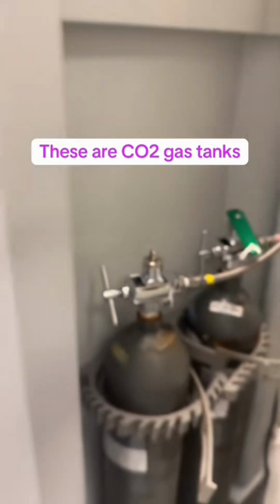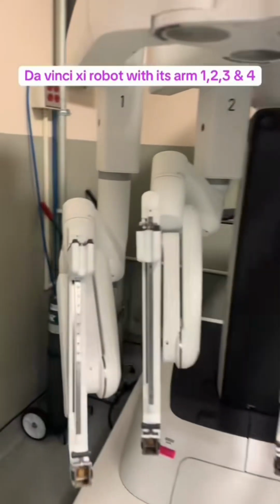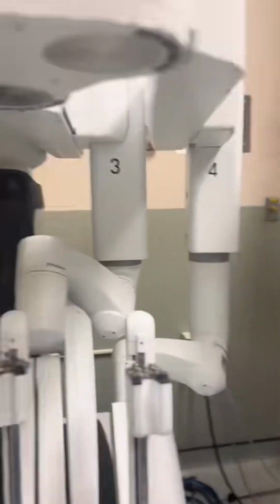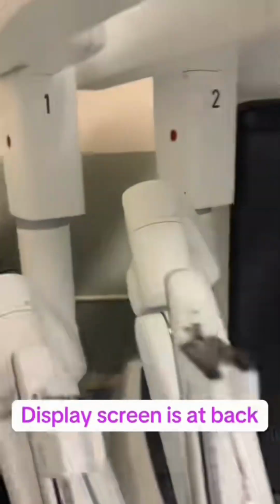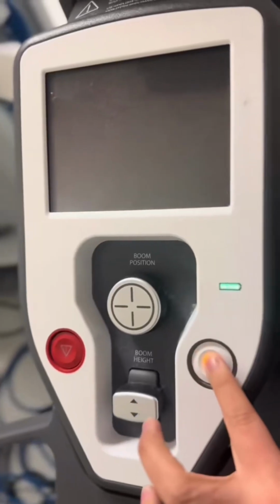Here on the side of the robotic tower, there are two CO2 tanks, and CO2 gas is most often used in robotic surgery. And this is the robot with 4 arms: 1, 2, 3, 4. On the back of the robot, there is a display screen.